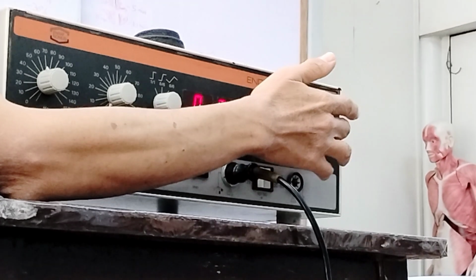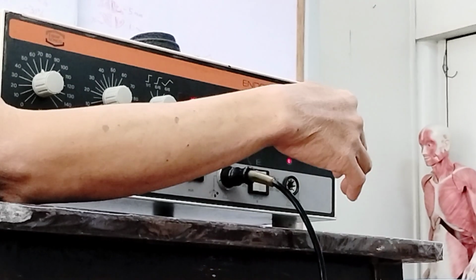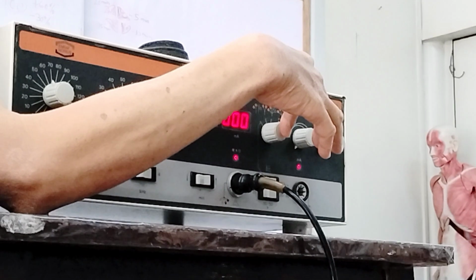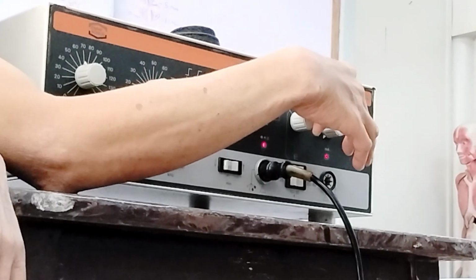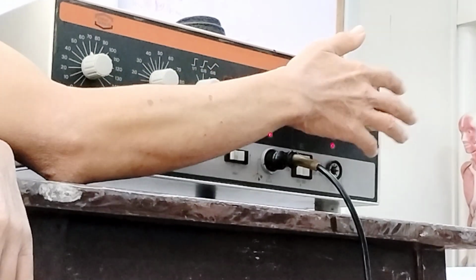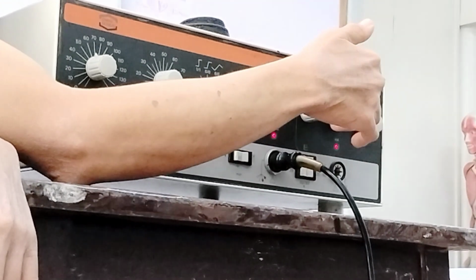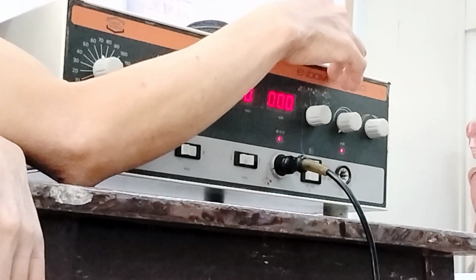This knob will only be used if you use quadrupolar without vector scan, and muscle stimulation. The others, you cannot use this anymore. So again, you can only use this for the quadrupolar four-pole method without vector scan and muscle stimulation.